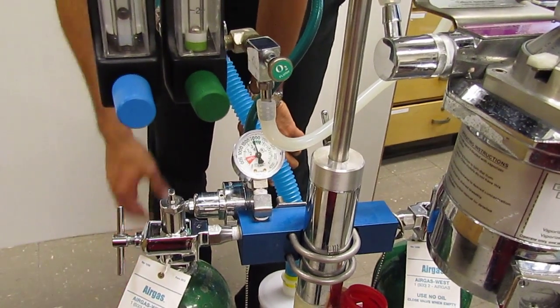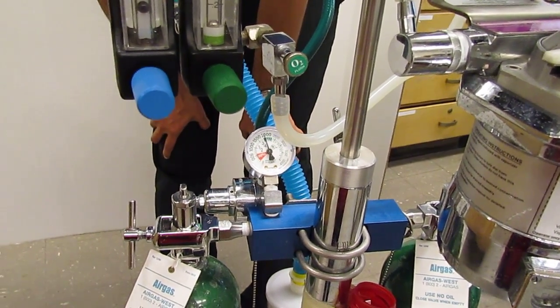because if you do that, you have to remember the oxygen gas in there is under very high pressure and it would be a hazard.